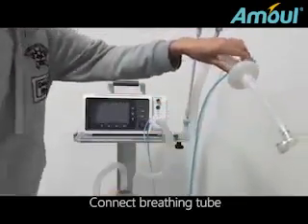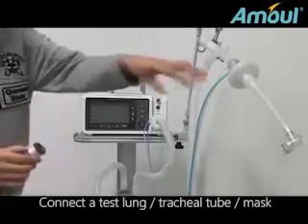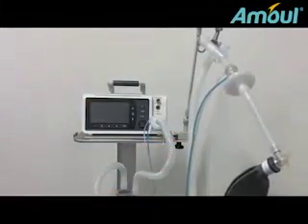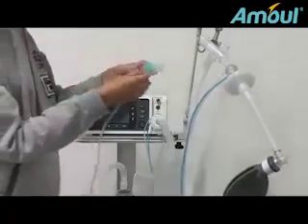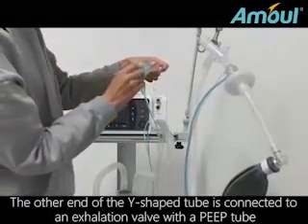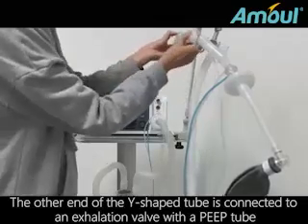Connect the breathing tube. Connect a test lung, tracheal tube, or mask. The other end of the Y-shaped tube is connected to an exhalation valve with a PEEP tube.